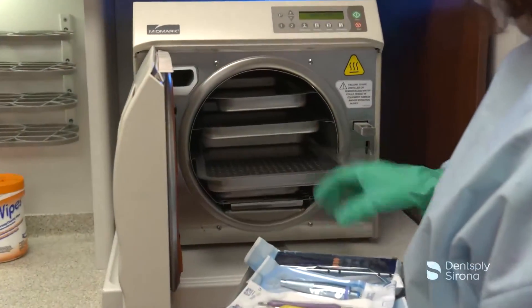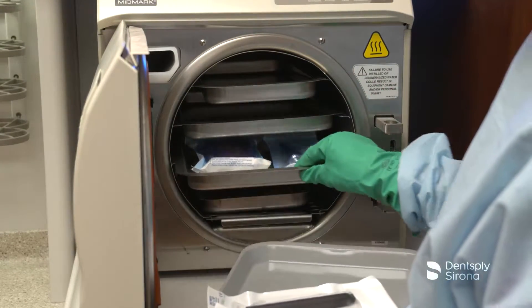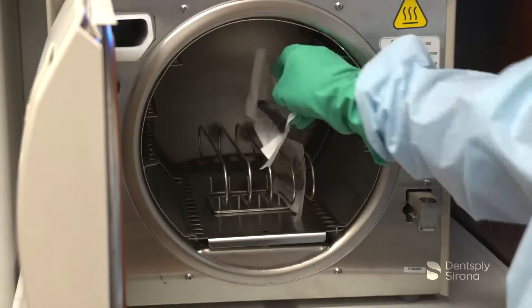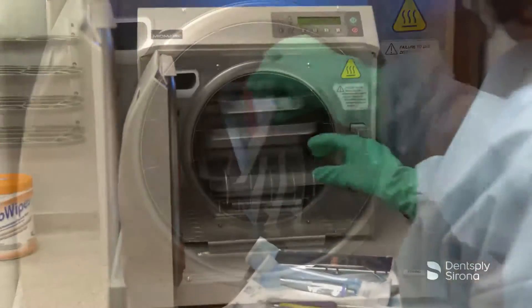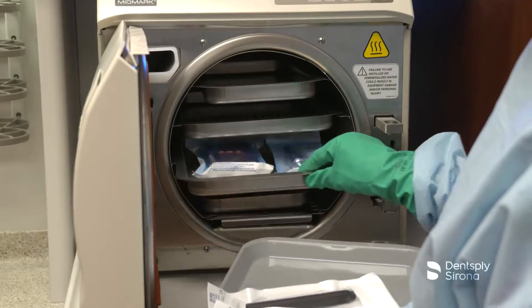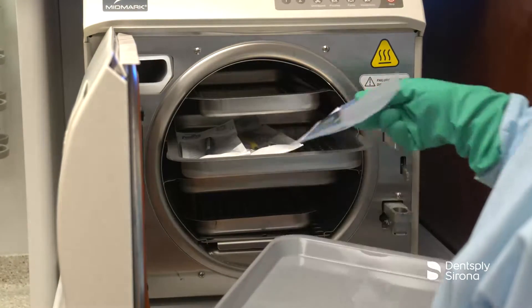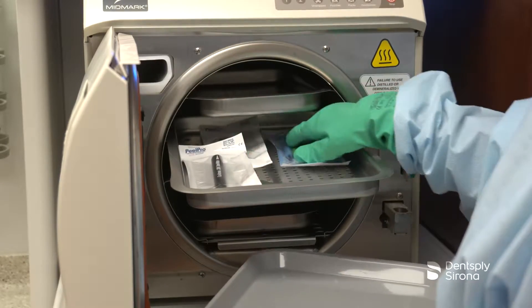When loading an autoclave, follow the recommended guidelines for the unit being used for proper placement of cassettes and paper-to-plastic pouches. If a vertical sterilization pouch rack is being utilized, the pouches may be placed on end during the sterilization process. If horizontal trays are used for loading cassettes and sterilization pouches, it is essential to follow the unit's manufacturer recommendations for placement of paper-to-plastic pouches. Follow the manufacturer's guidelines for the steps in use of the type of autoclave unit being used prior to starting the device.